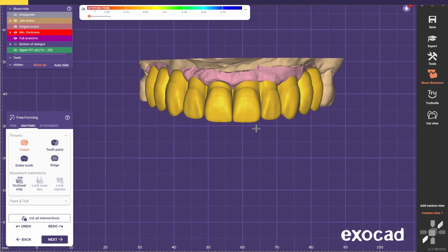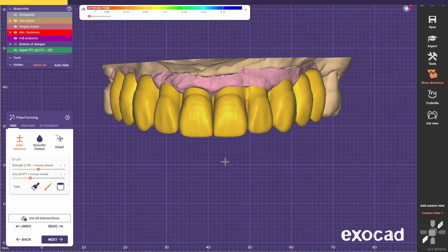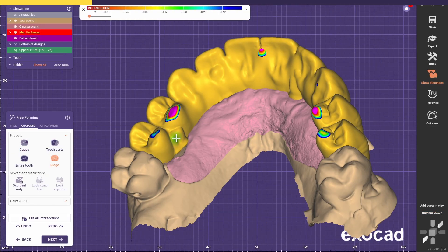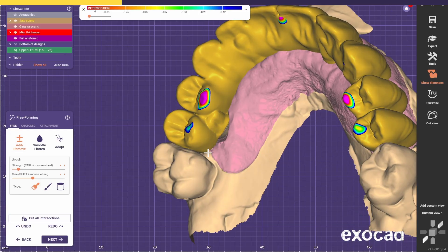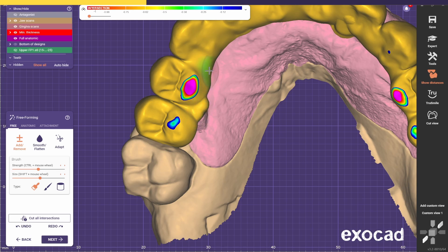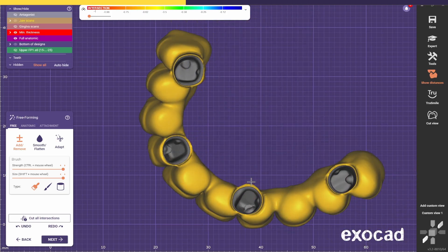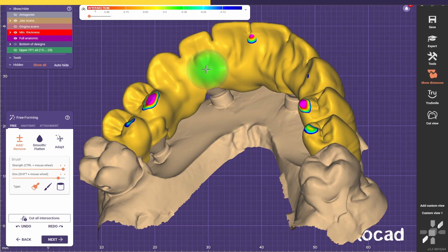After it's calculated, we just do the final touches. I want to make this embrasure look better because it was a bit deformed. The abutments are showing the shape of them because it's minimal thickness. We need to always increase the thickness on the back to make sure that the bridge is strong. Just thicken up all the back of the bridge — especially because on this FP1 I made the buccal embrasures quite deep for better aesthetics on the buccal. To ensure extra strength, we focus on the thickness on the back, and on the front we focus on aesthetics.